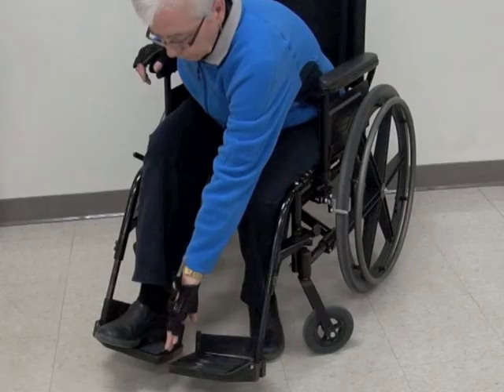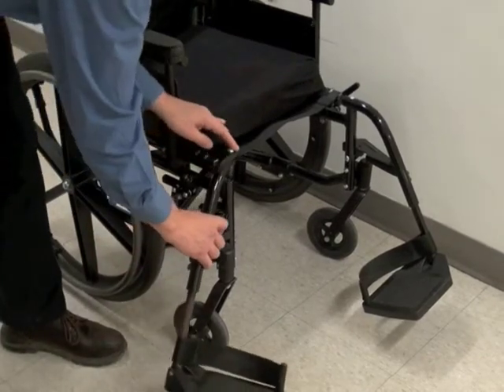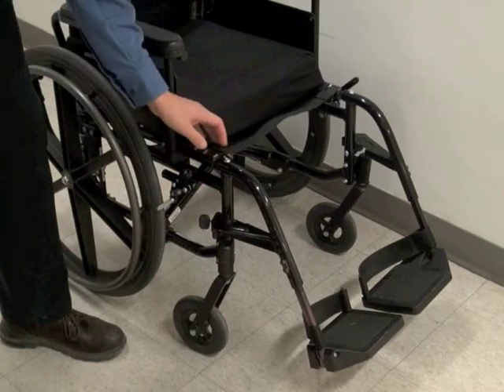You should be careful not to tip or lose your balance when leaning forwards to reach the footrests. Some people find it helpful to hold onto the armrest with their non-reaching hand. The footrest can be replaced by carefully slipping it back into the housing in a swung away position and then rotating it back towards the wheelchair to support your feet.